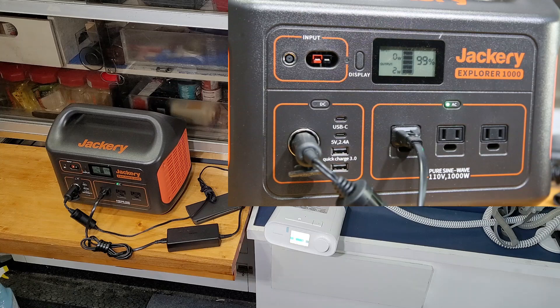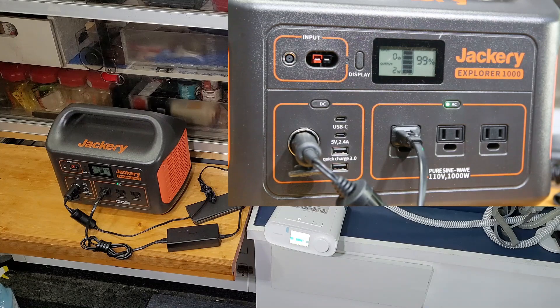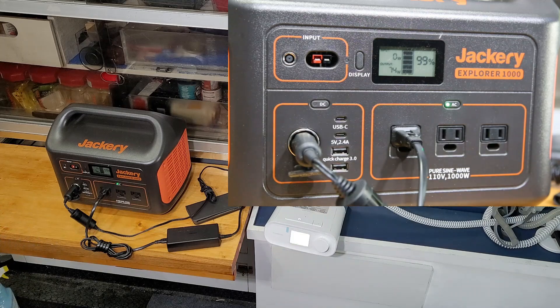Going to give it a little minute here and try to turn it on. And there we go — power is up. It's reading 78, 81, 80, just ramping up right now. It takes a few seconds to settle down, and it seems to be stable at between 78 and 80 watts right now.